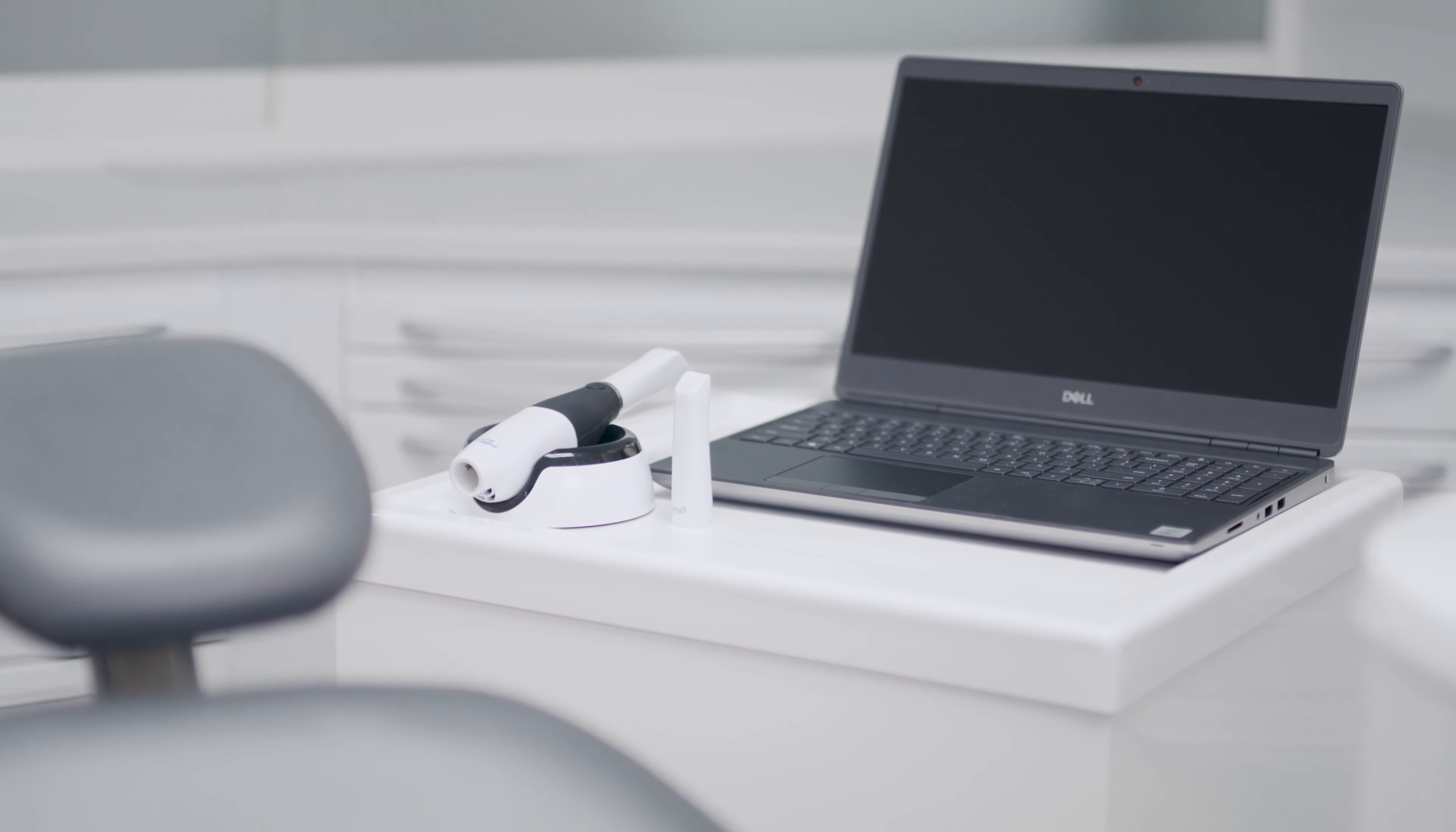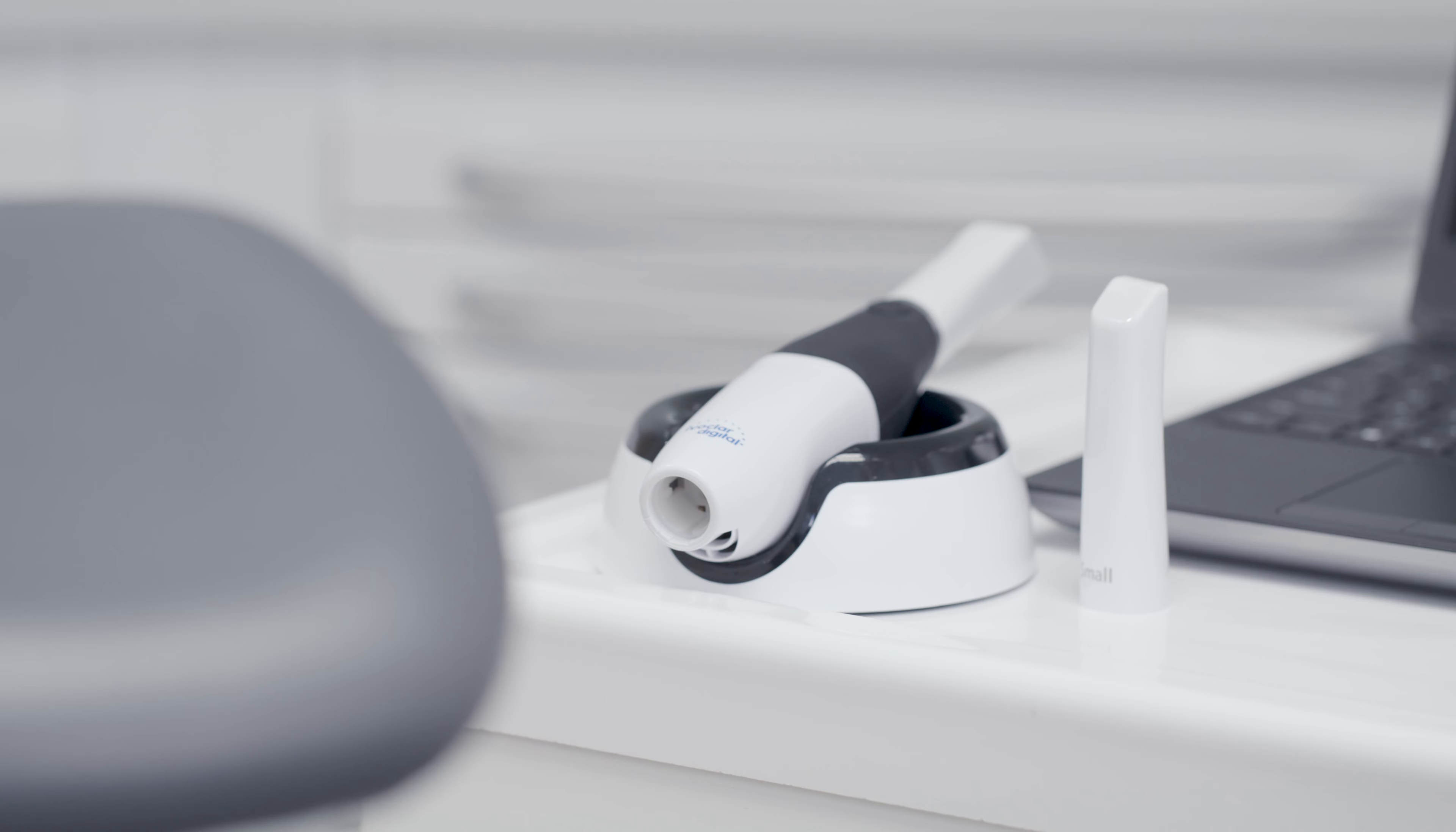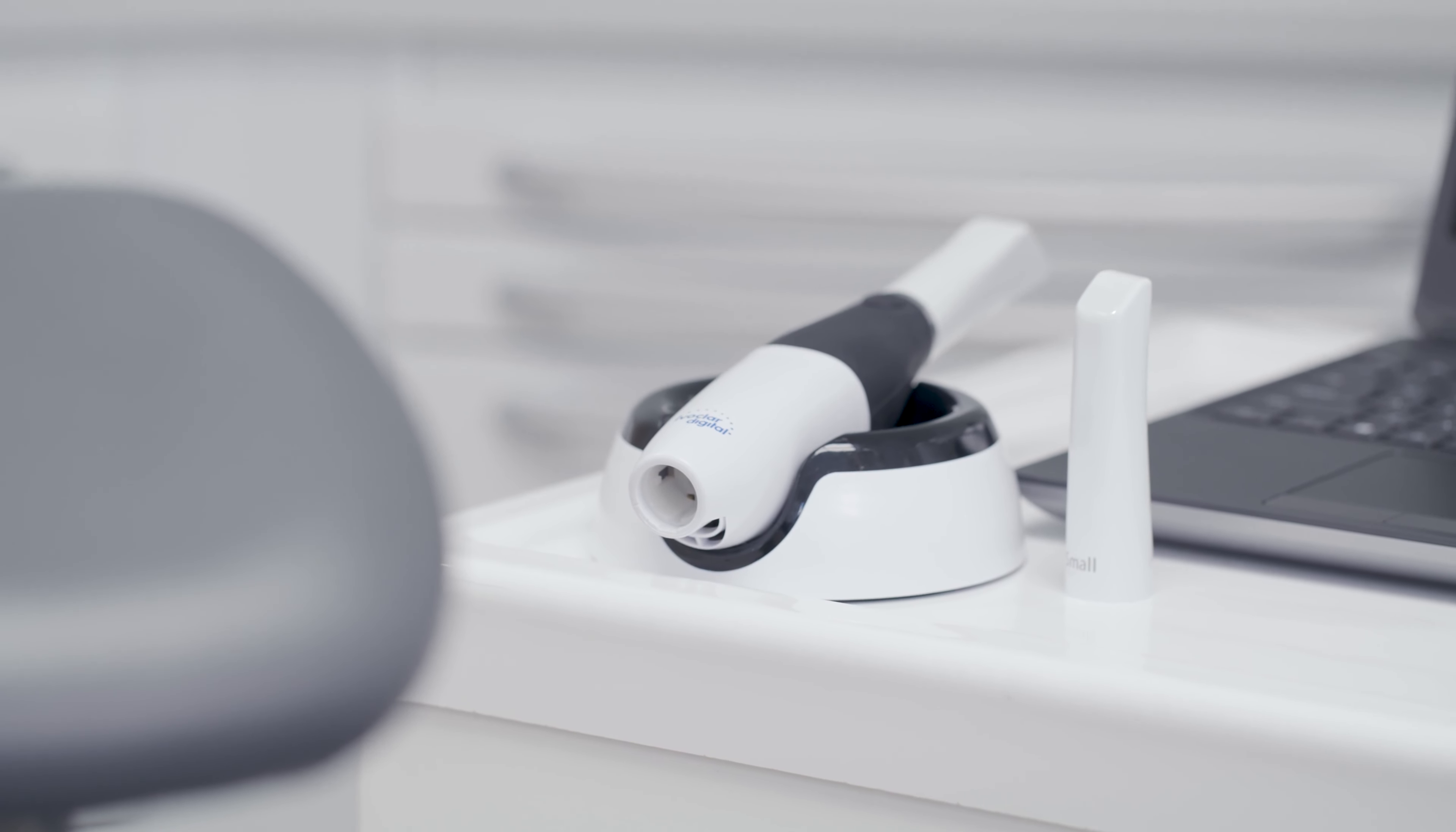VivaScan consists of an intraoral scanner and a perfectly fitting holder so that you can conveniently rest and store your scanner when not in use.